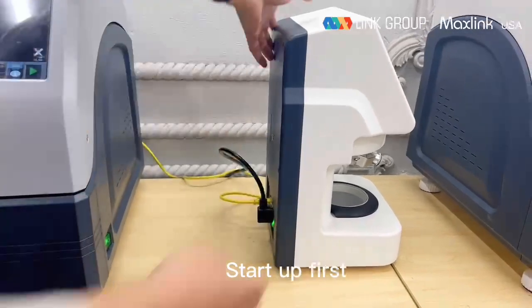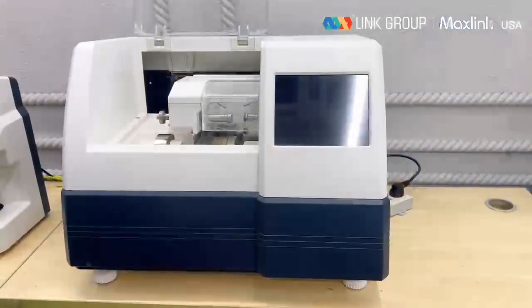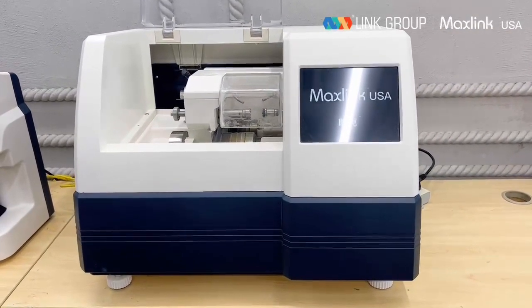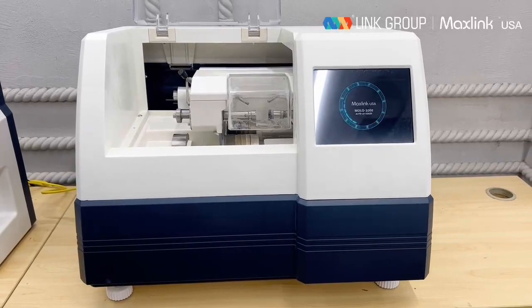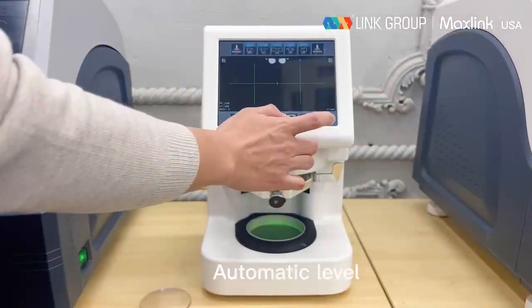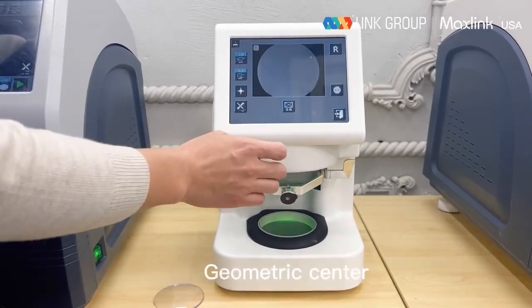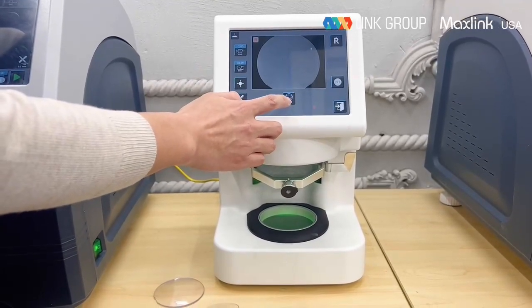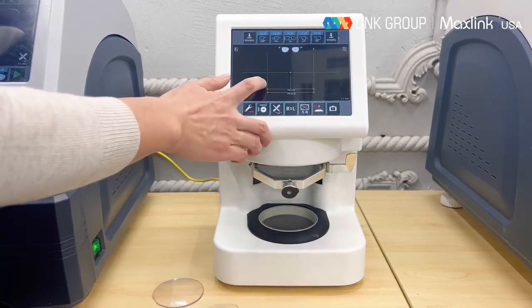Start up first. Scanner function. Automatic level. Center movement function. Geometric center. Optical center. Switch left and right. End markings. Stencil scanning.